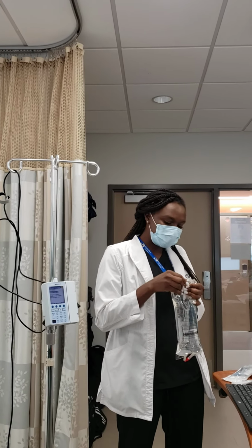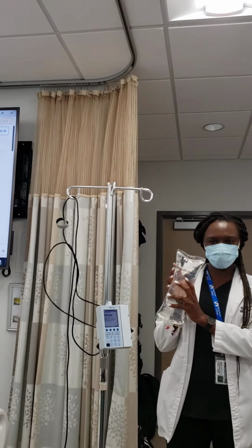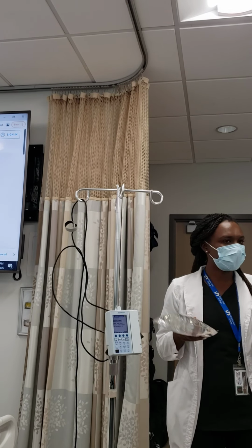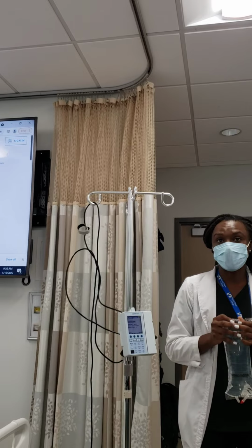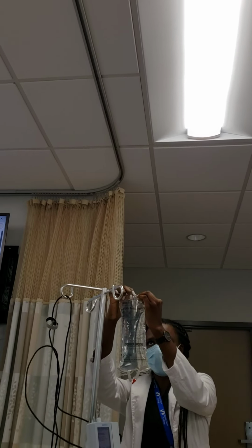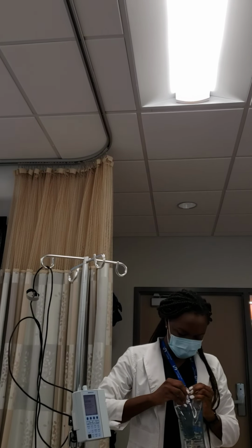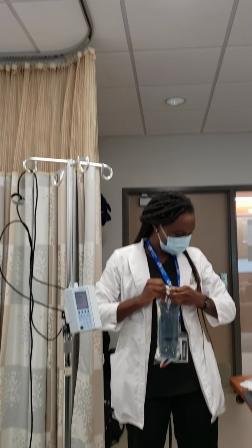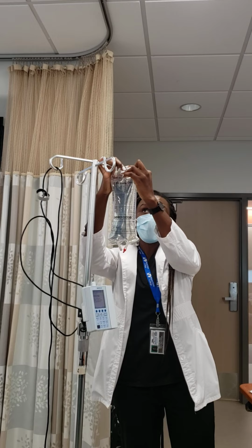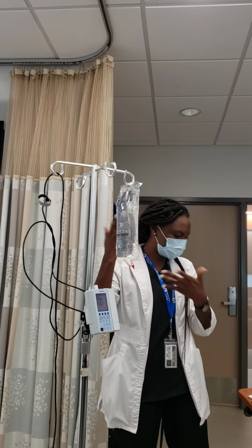All of the supplies that you're going to need is a primary infusion bag, which, as you see here, could be normal saline, half normal saline, dextrose, whatever is ordered by your doctor. So you have this here. It normally has this little hole here where you can hang it up. Hold on. So you need to gather the supplies first. Of course, you will have the supplies prepared for you when it's time for your performance. All you have to do is just know how to put it together.